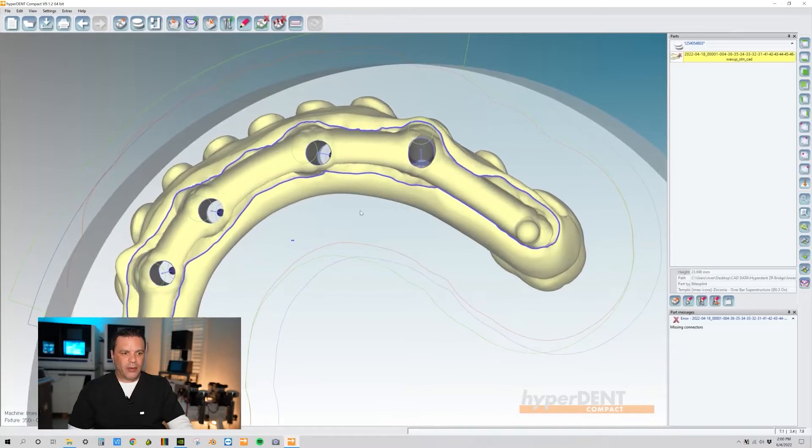Hi, this is Mark Nelson with Digital Edge Dental Lab. Today we're going over a quick fix for screw access holes that are pointed in the incorrect milling direction.